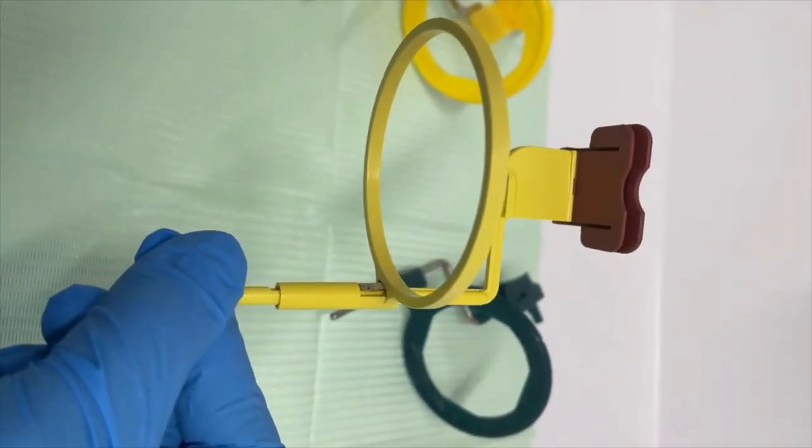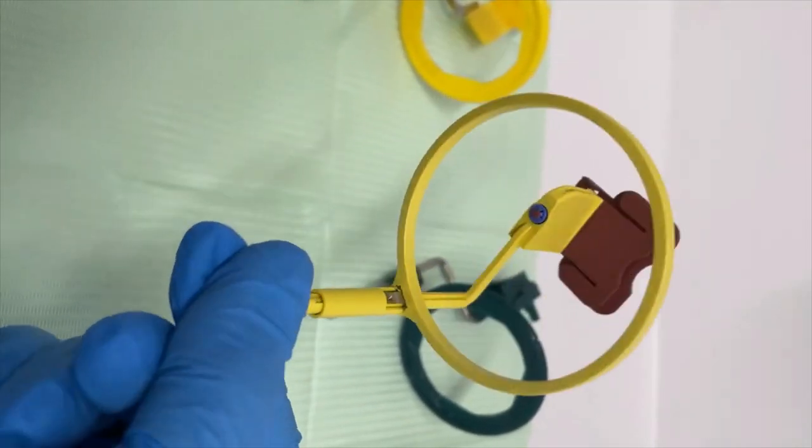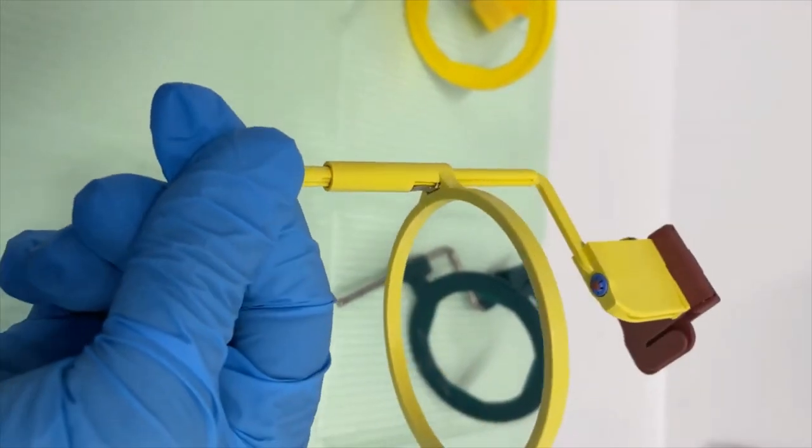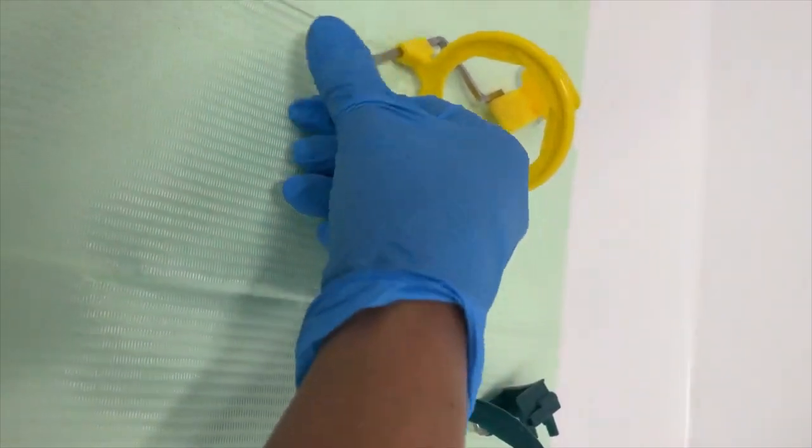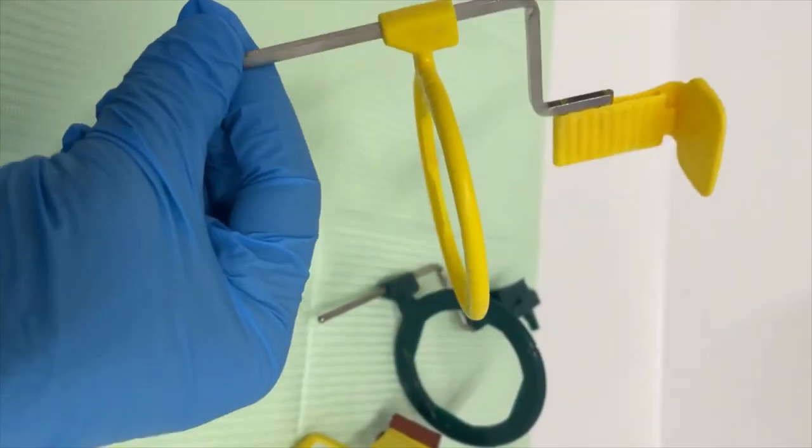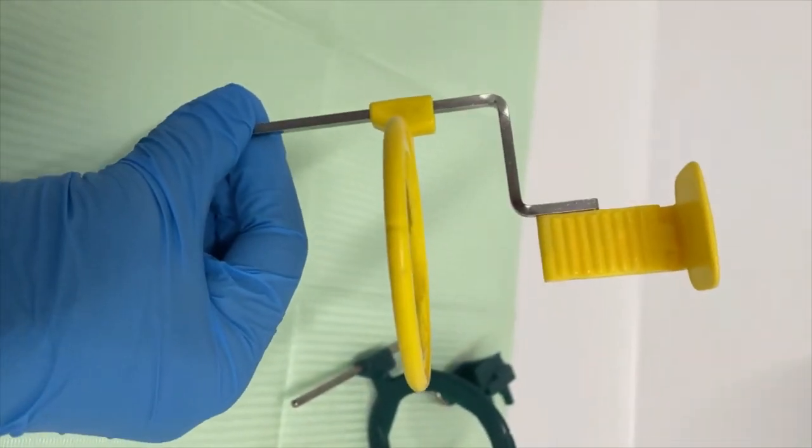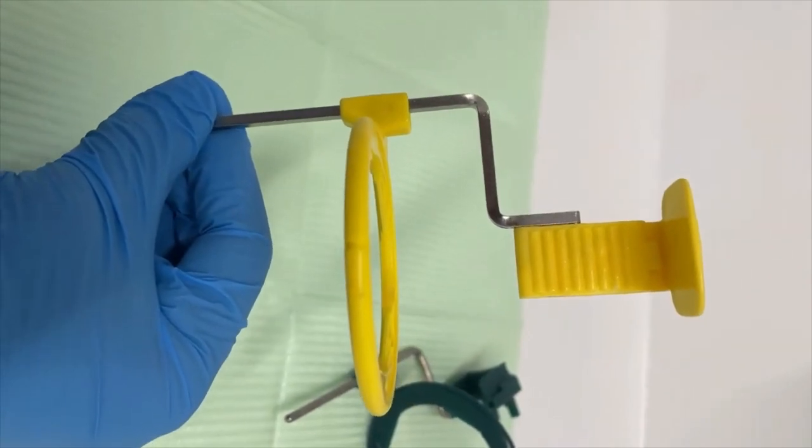This is another kind, and this is another posterior periapical holder.